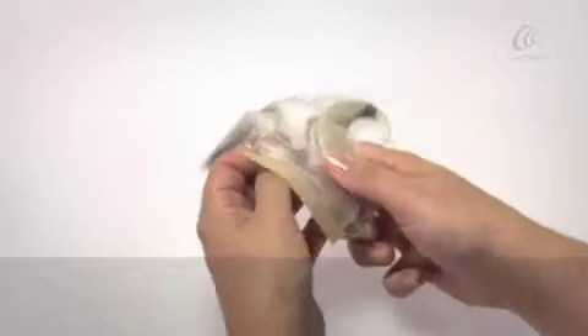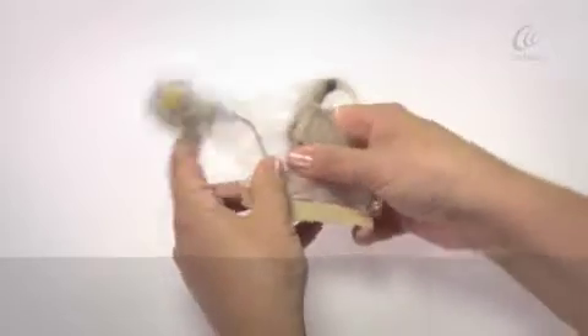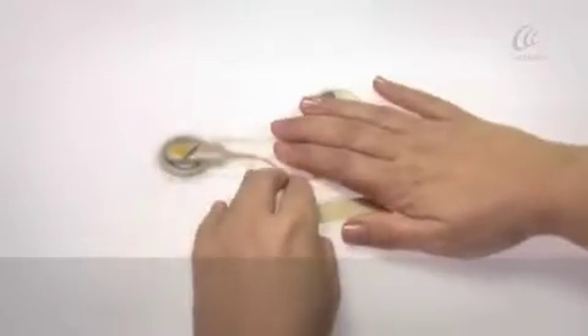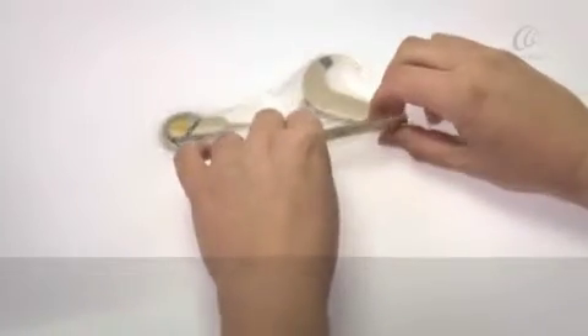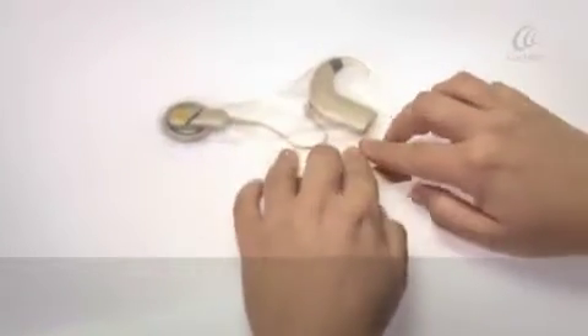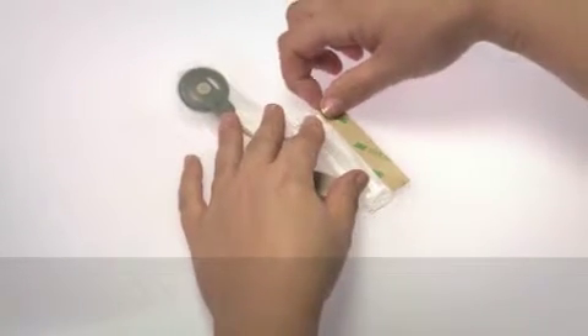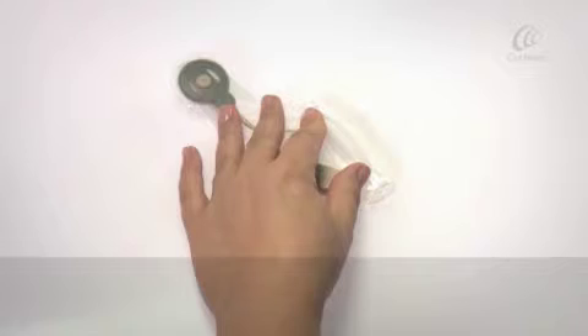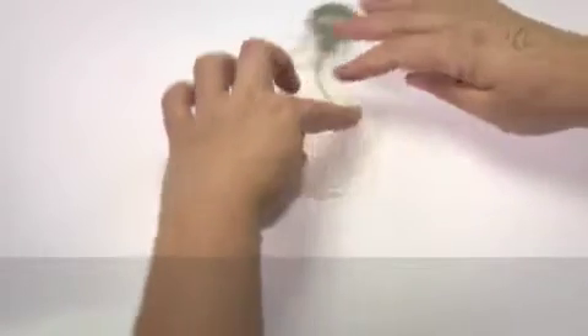Make sure the coil cable is free from the seal. Press firmly on the seal to ensure it is securely closed. Turn over the Aqua Accessory with the processor inside and remove the adhesive backing paper. Fold the adhesive strip over the press seal.